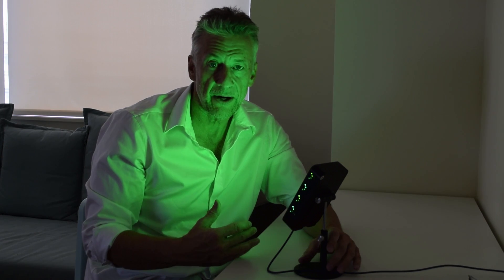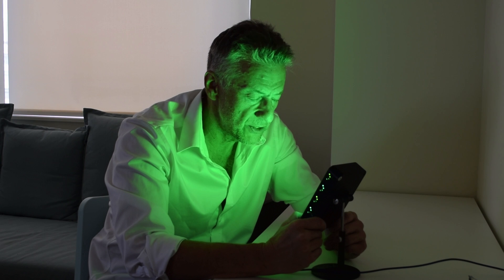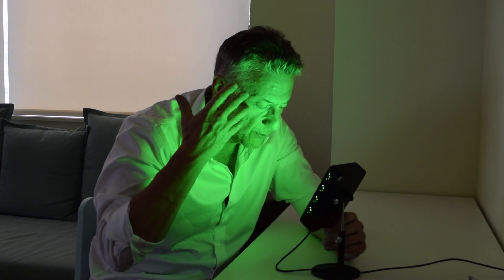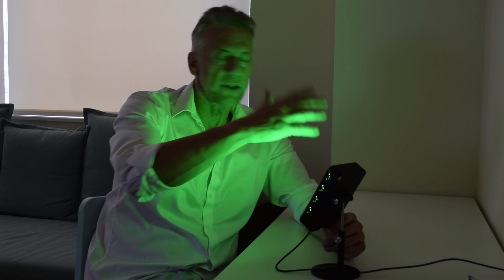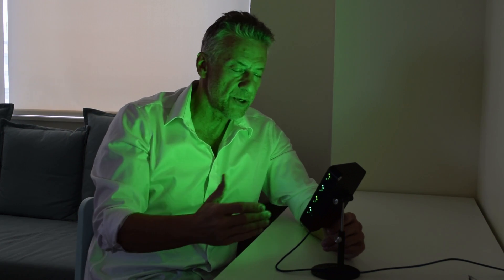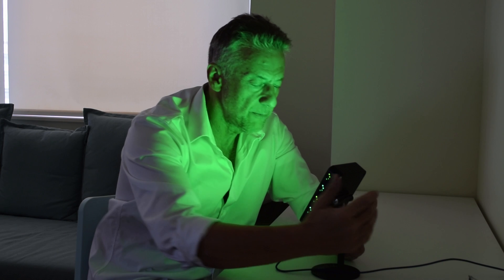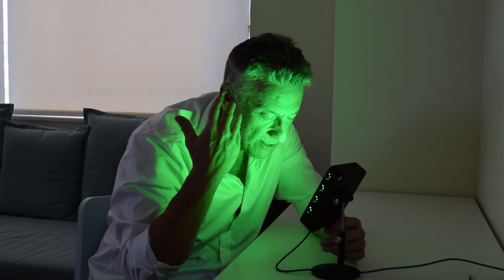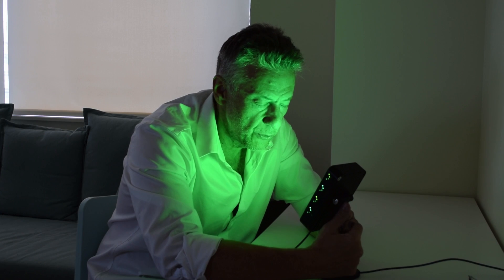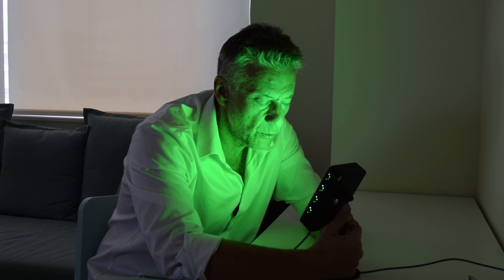When you find a comfortable chair and settings you want to start with, you're going to shut your eyes and move your face several inches away from the lamp so that the green is entering through the closed eyelids. It's important to shut out all other wavelengths of light. The unique feature of the migraine lantern is that it's powerful enough for you to close your eyes, eliminate all other wavelengths, and move your face several inches away so that the only light penetrating into the retina is the green wavelengths you control by adjusting the mode and intensity buttons.